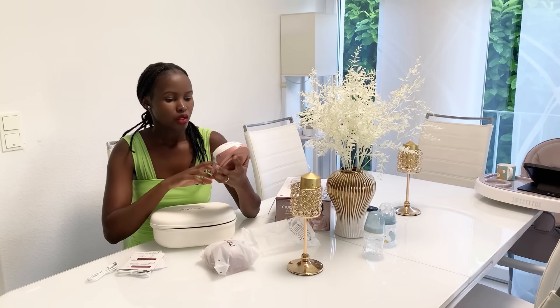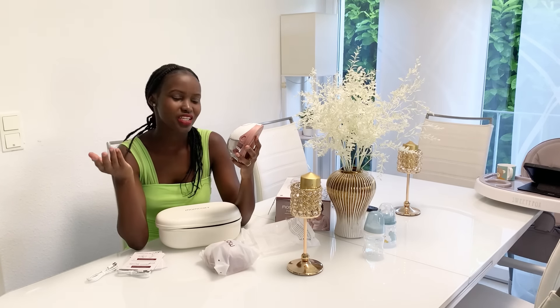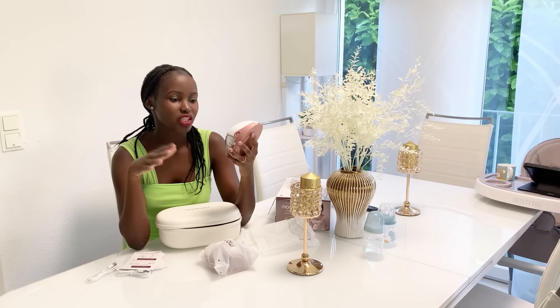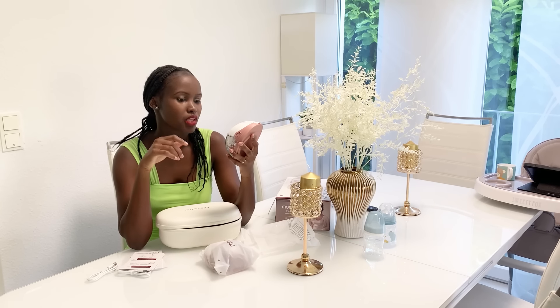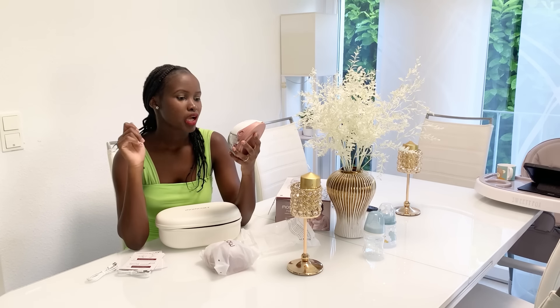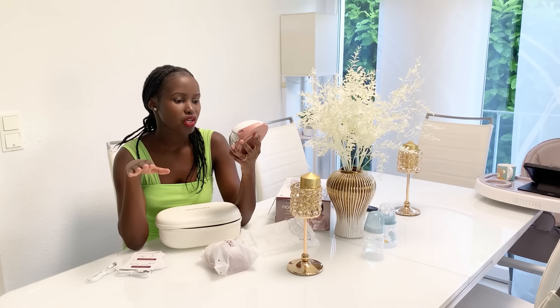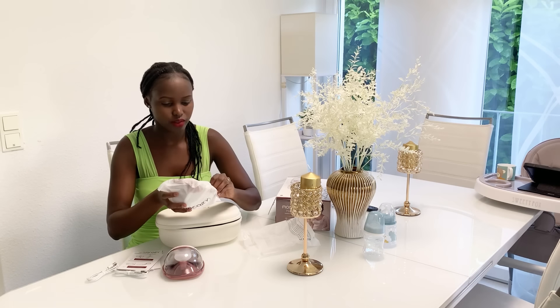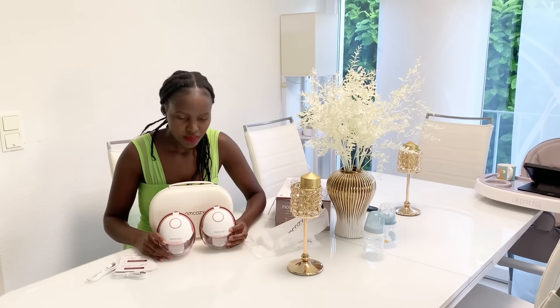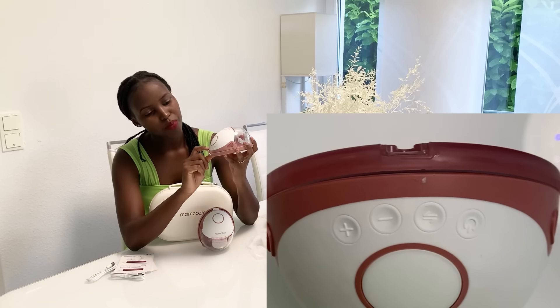This is how the pump looks — there are things written here. The pump will shut off after 30 minutes; I don't think I want to pump for that long. Fully charge the pump before first use, so I need to charge it — it can't be turned on while charging. Assemble it correctly to avoid leaking or low suction. Do not open the flange directly to pour milk.